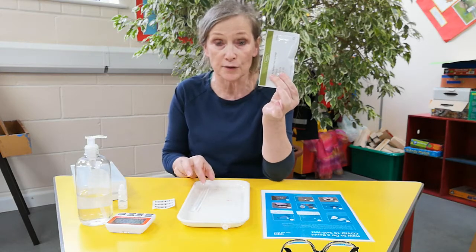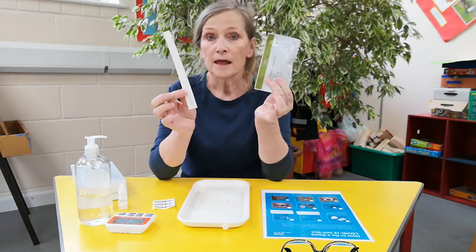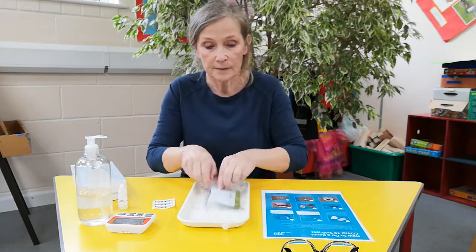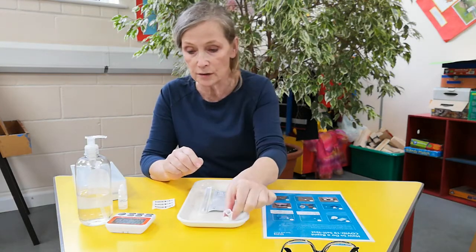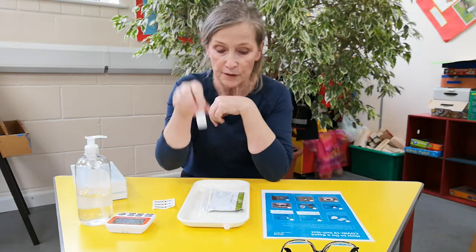That's the lateral flow device. And then there's the swab. There's a little tube that you're going to use and the buffering fluid. That's what you'll be given.